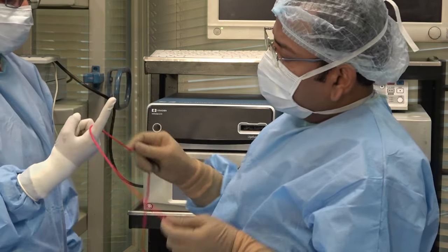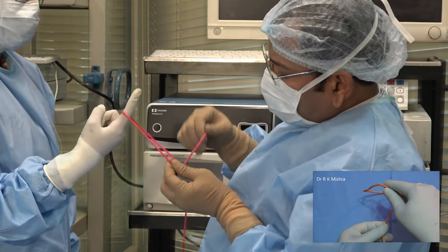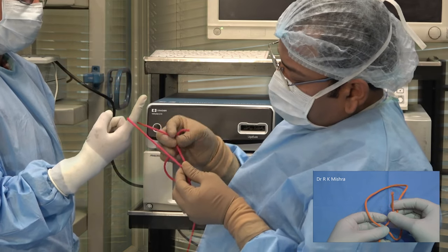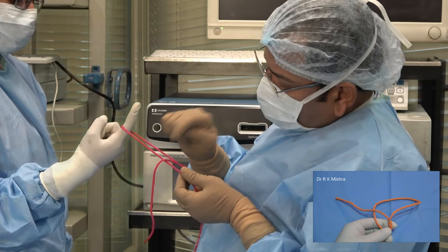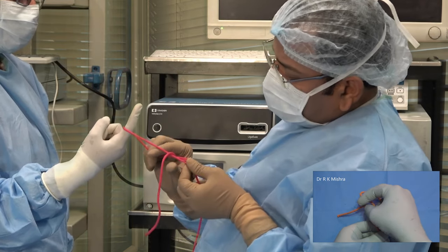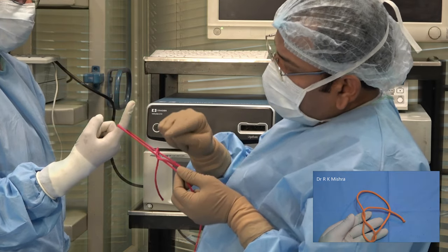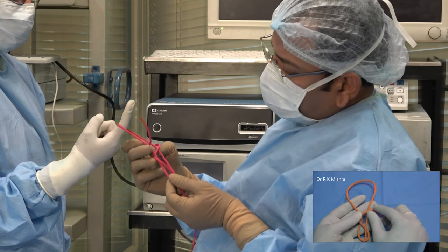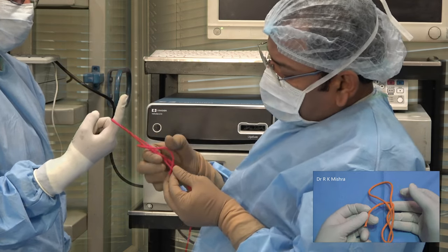Again, we will see — put the shorter on the left side, longer on the right side, put shorter above the longer, and then a single hitch will be taken. After taking the single hitch, you will encircle the left limb — first going from above and then coming from below upward — and then you will encircle the right limb and left limb both.